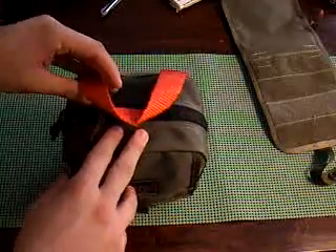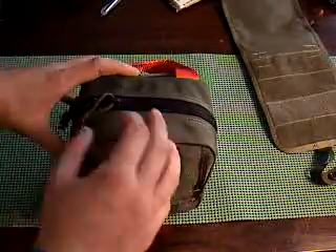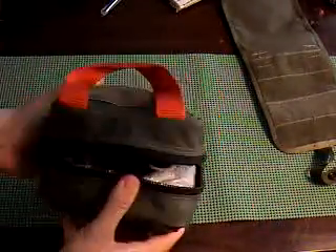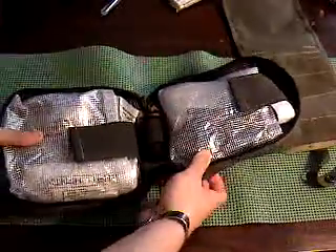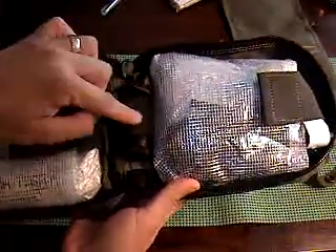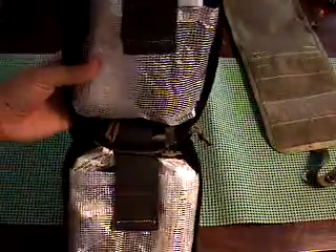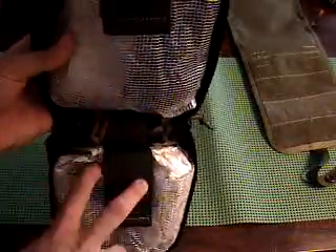You've got a red handle right here that identifies it as a med bag once you open up the pouch. Double zippers. When you open it up, you'll see that we have shock webbing in the middle to close these two bags. They're oriented this way so that if the pouch is on the side of the pack, when you open it up, the pockets face the right direction.